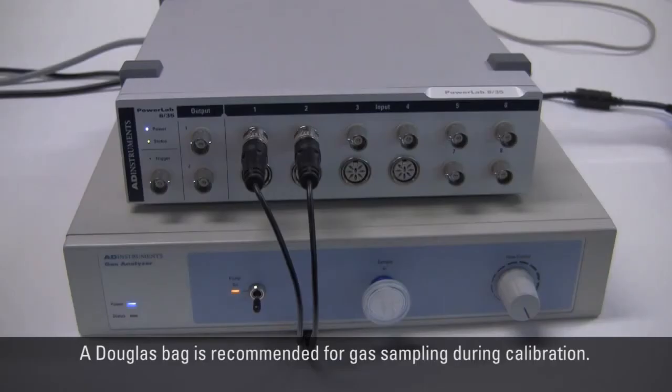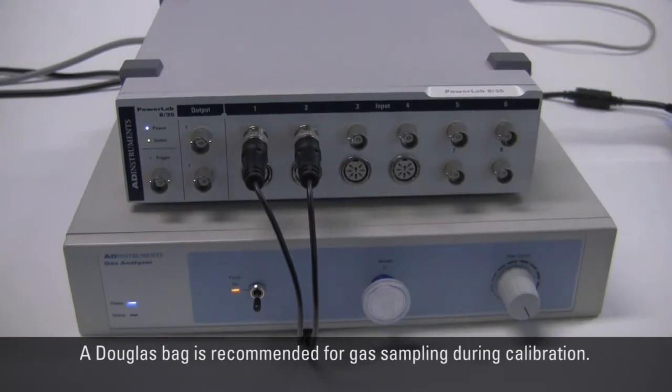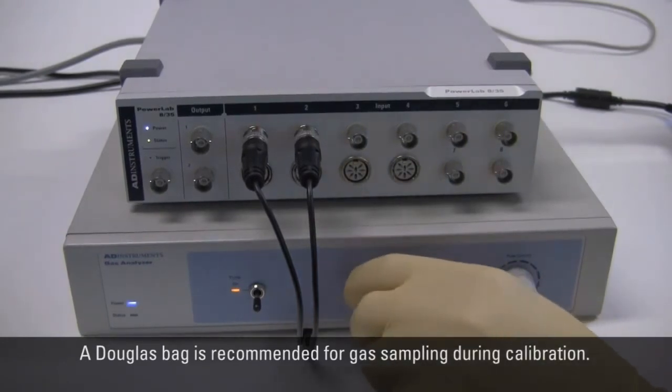Calibration Gases. A Douglas bag is recommended for gas sampling during calibration. A calibration gas can be used to obtain an accurate calibration.